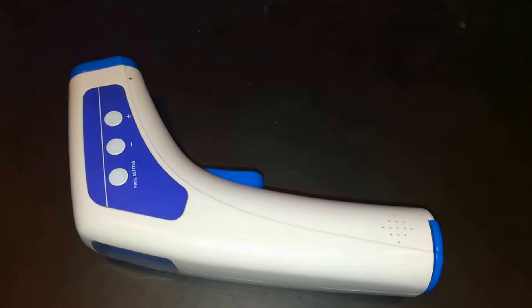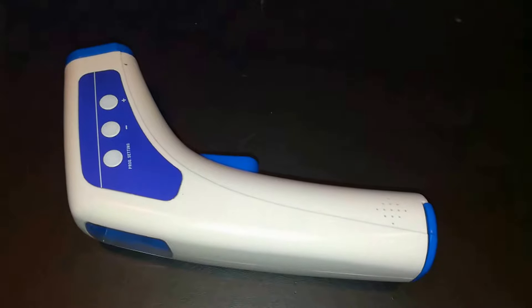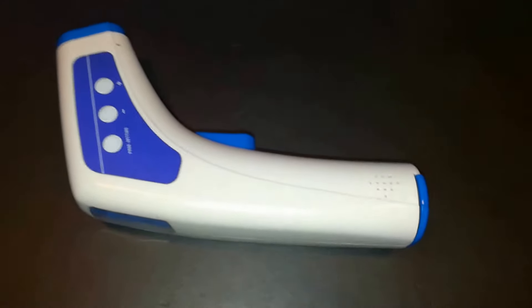Hello world, this is Random Fix and today I'm going to be doing a quick review of this contactless thermometer. We actually bought this back in 2003 when we had our first son.